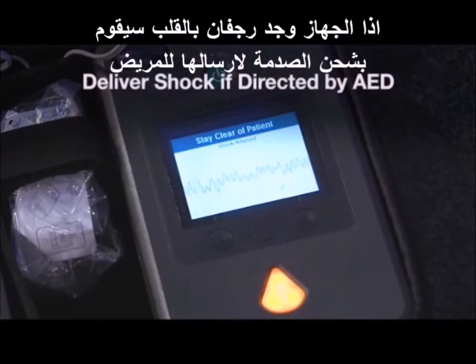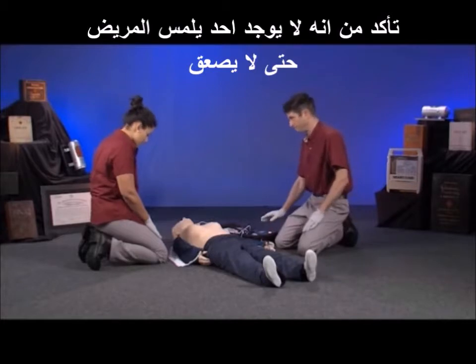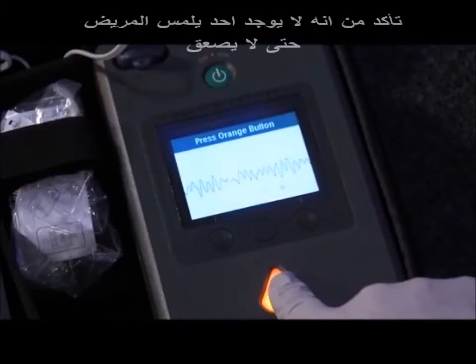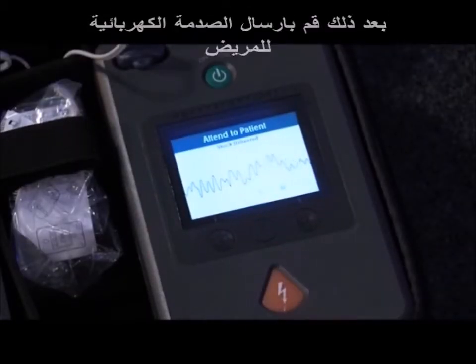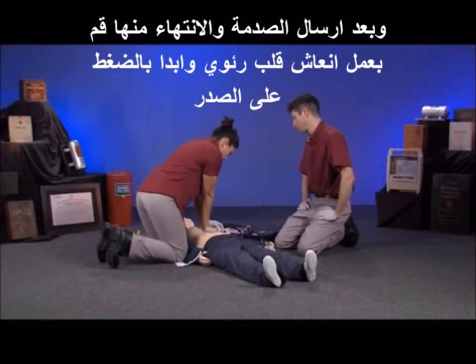Shock advised. If defibrillation is advised, the AED will begin to charge for shock delivery. Quickly look to make sure no one is in contact with the person before delivering the shock. Now, shock delivered. Once delivered, immediately resume CPR, starting with chest compressions.